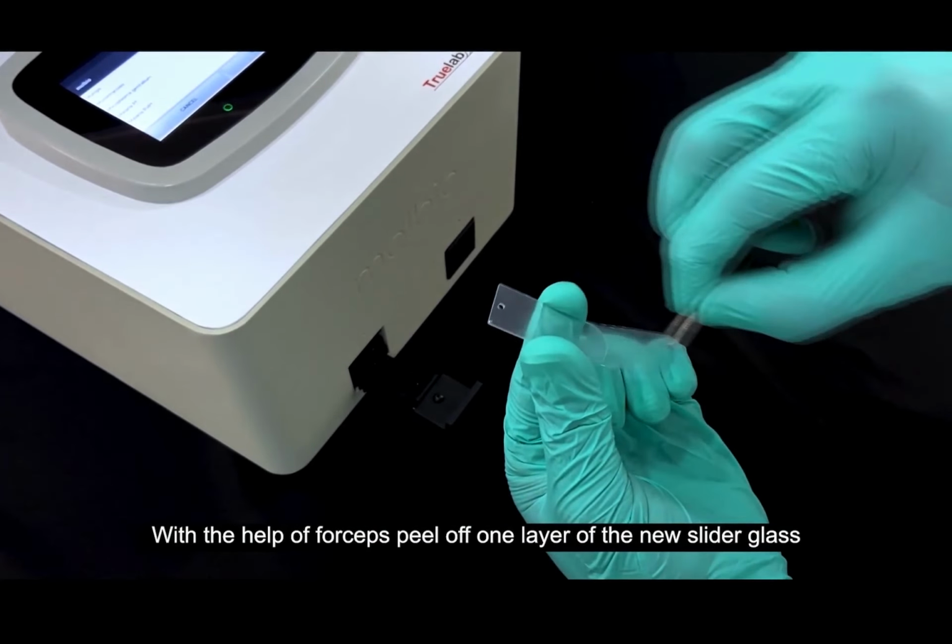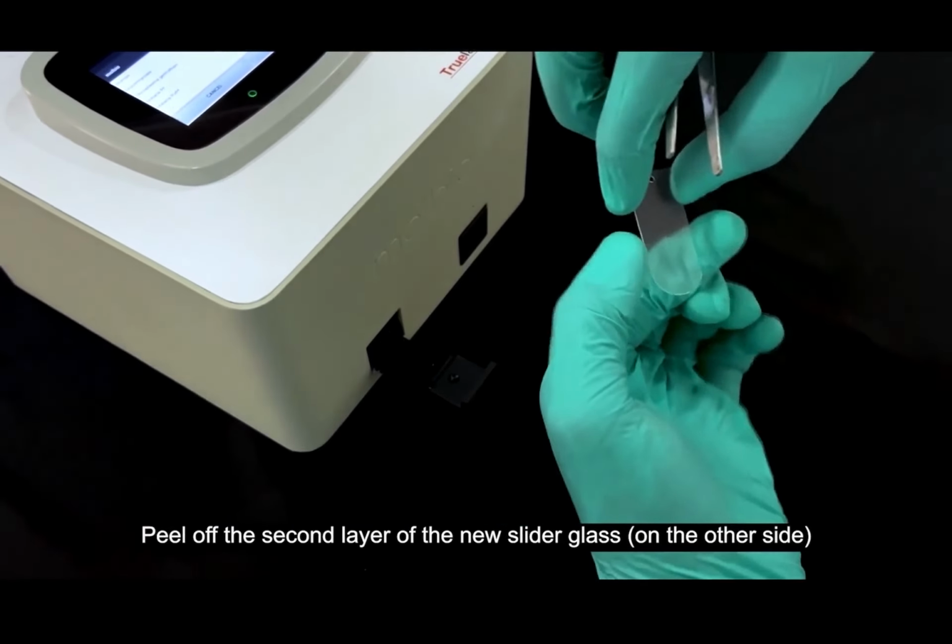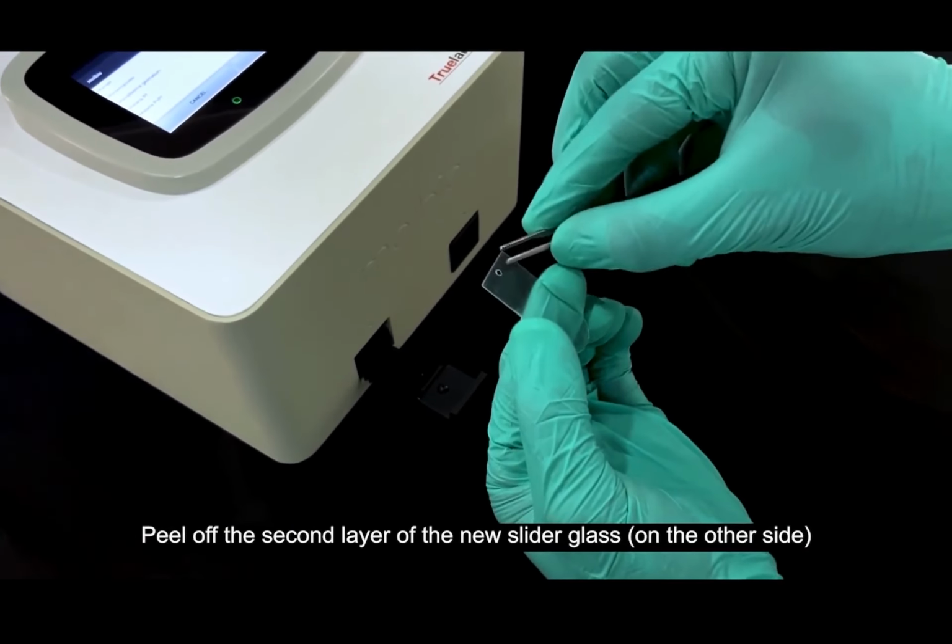Like tempered glass for your mobile or scratch guards, which have a protective plastic layer on both sides, this slider glass also has this protective plastic layer on both sides so that there is no scratch or any dust or fingerprints at the time of installation. So remove the plastic from the other side.